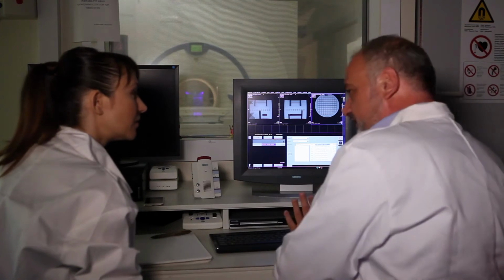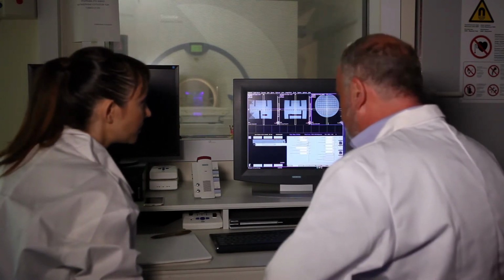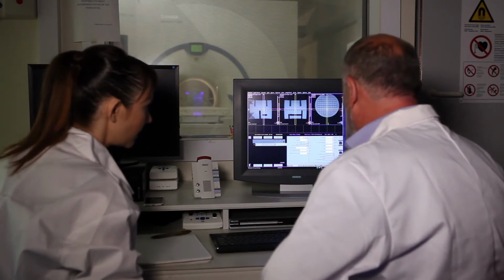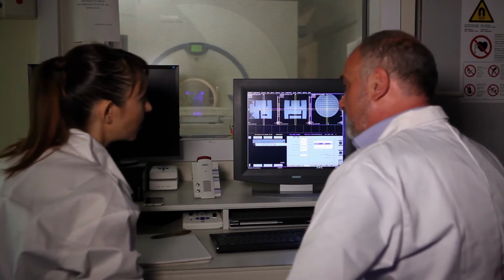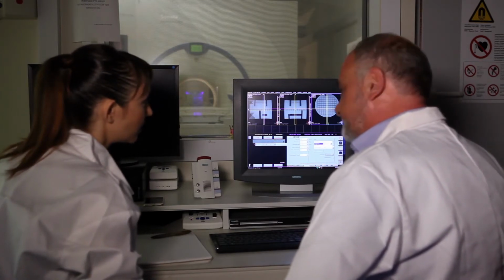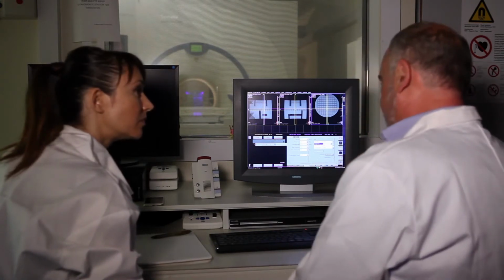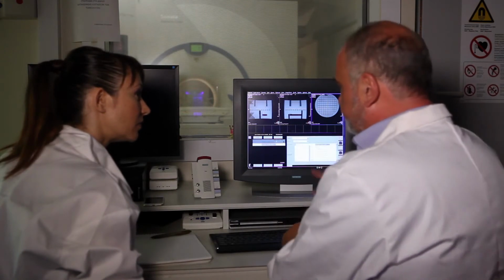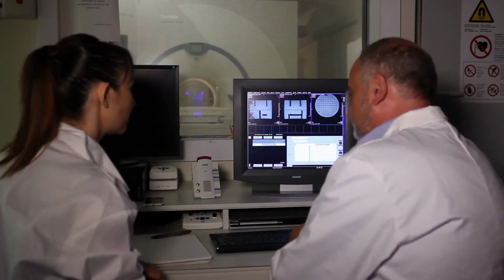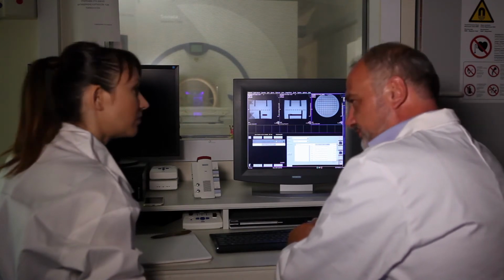How do we do this? Actually, we repeat the sequence as it is. We don't change anything. The only thing we put here is that we have to use a large FOV. Large FOV means that the system corrects and gives the appropriate corrections to the gradients in order to get rid of this distortion. But we have a drawback there. I'm going to do it and you're going to see exactly what's happening.